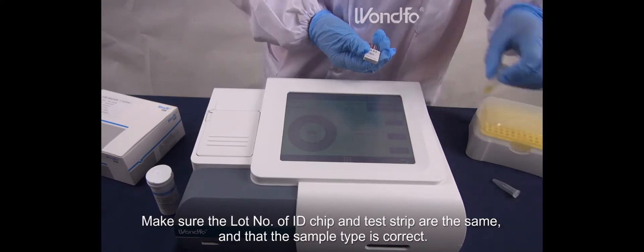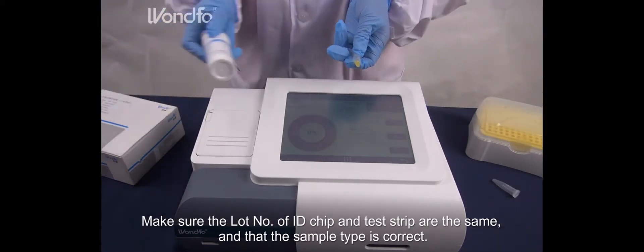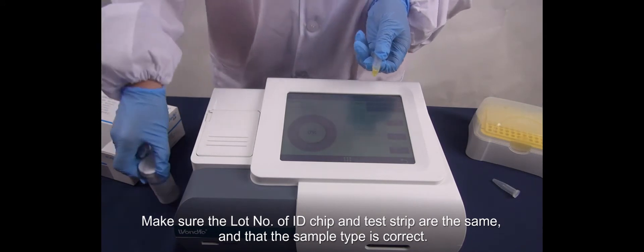Make sure the lot number of ID chip and test strip are the same, and that the sample type is correct.